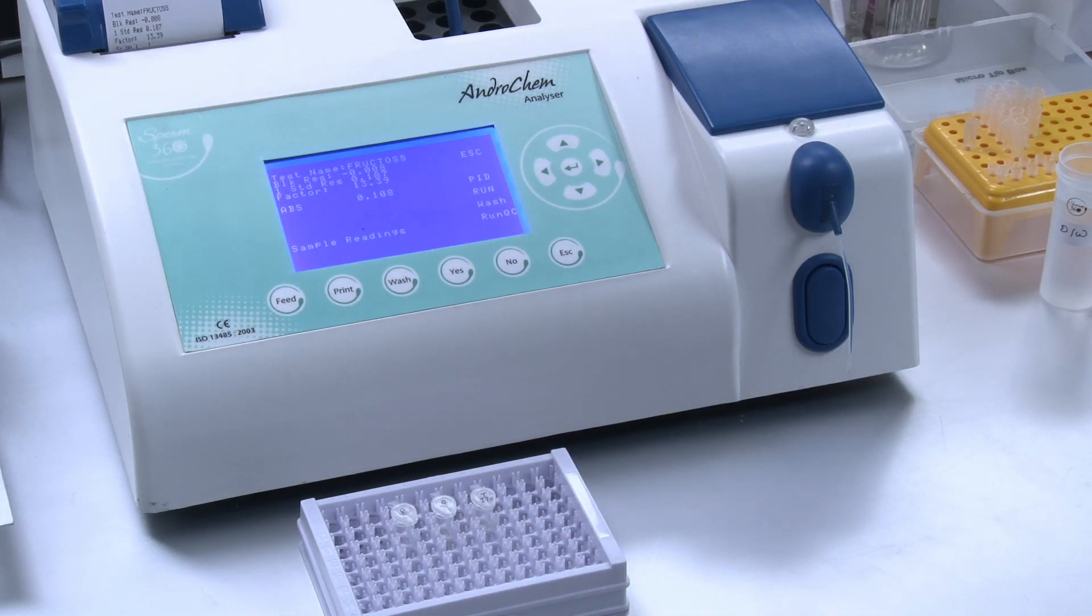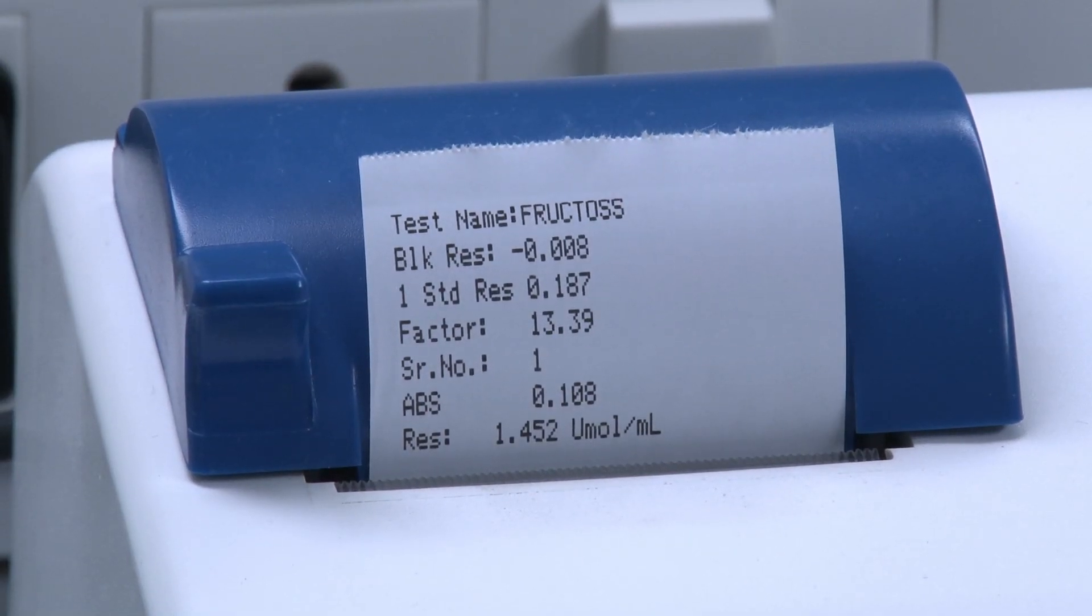The analyzer displays results of the sample and print result is also available.